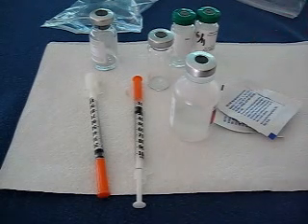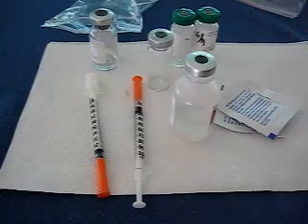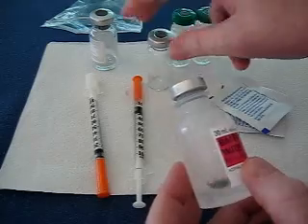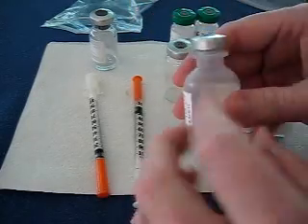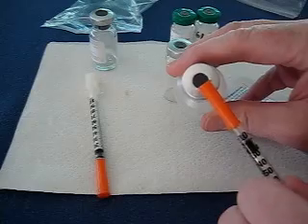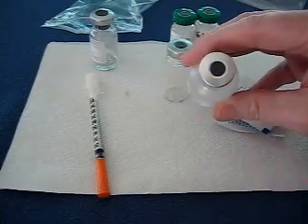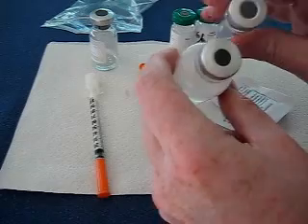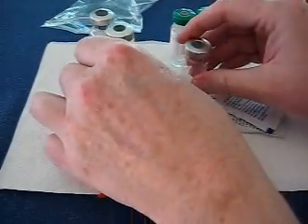What I'm going to do is share what I learned from the nurse. Injectables have to be kept sterile, and so most of the bottles you'll find — large or small — will come with a metal or plastic retaining rim and then a rubber dam on the top. That rubber dam is where the needle pokes in to get the fluid out. As long as that's intact, the container is sterile.